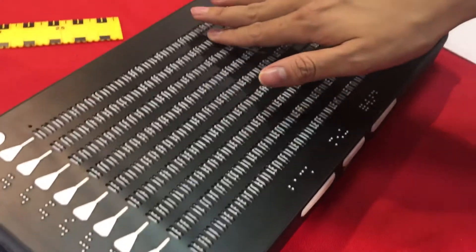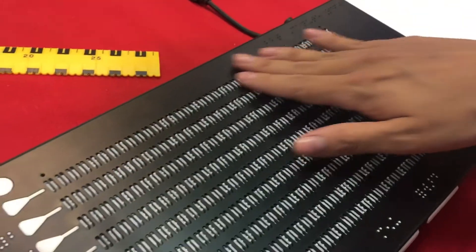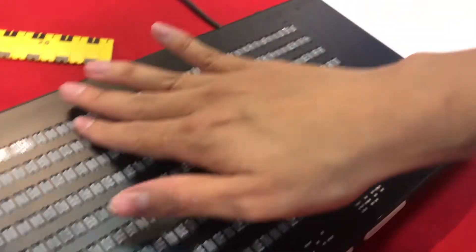At the moment you're looking at the England counter cricket table, which was a file made by one of my colleagues. This shows us a real advantage of multi-line braille — you can look at tables, you can look at maps, and you have that context intact.